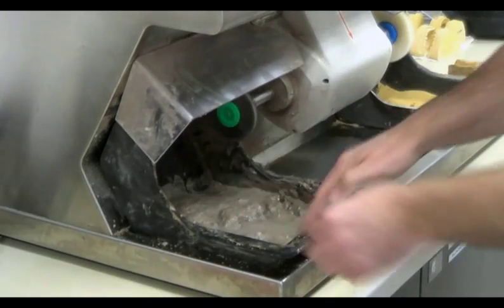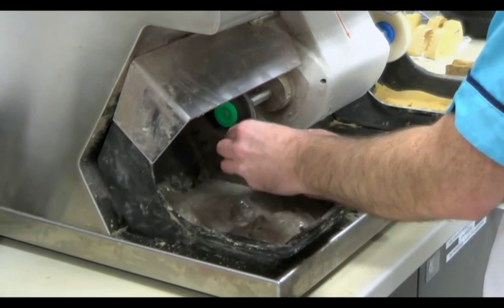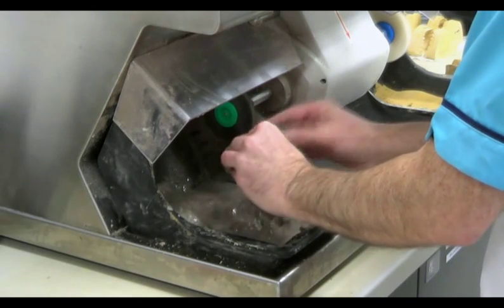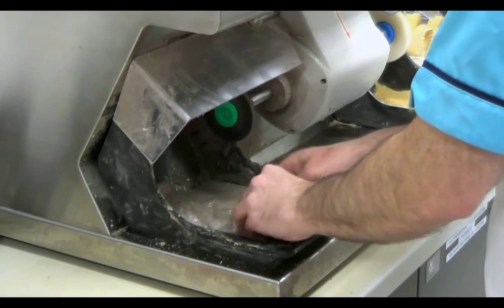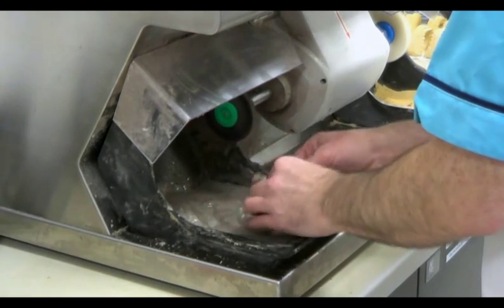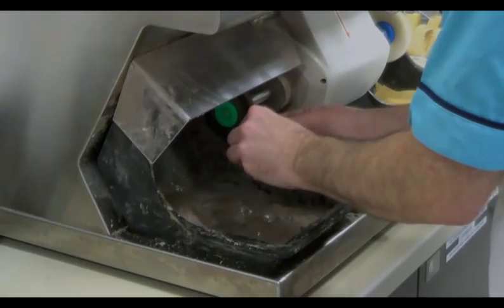Moving over to the polishing lathe, it's time to apply the final finish to both dentures. The first material that we'll use consists of pumice in the form of a thick slurry. We'll use a familiar approach here, employing a variety of brushes ranging from coarse to smooth. We apply pumice to the denture and by spreading fingers beneath it, we can support it under pressure to ensure that it doesn't break. Moving it around will work the pumice into the denture and remove any light scratches and bumps. This polishing should be applied only to the main flange areas and sulcus edges.